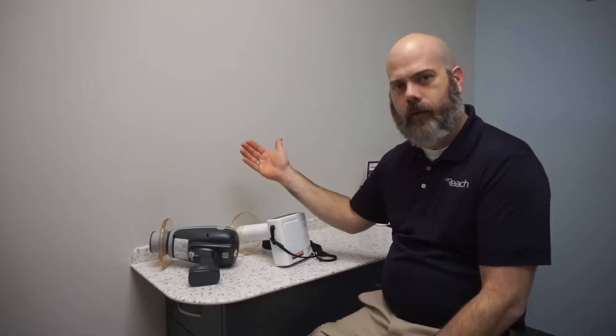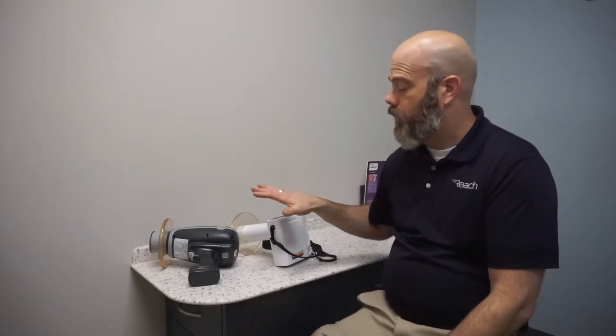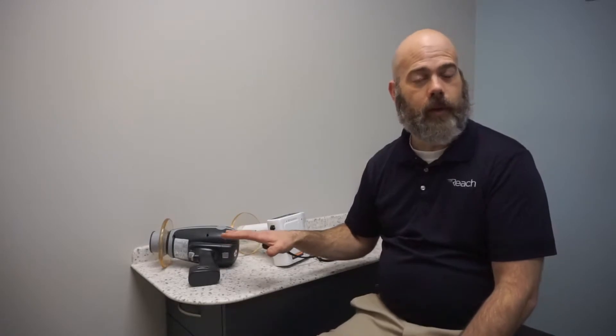On a wall-mounted x-ray the output is much higher. On a handheld x-ray unit it's going to be a bit lower. The easiest example to illustrate this is your cell phone camera.